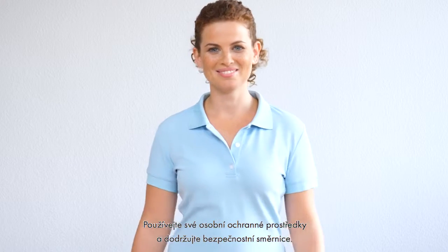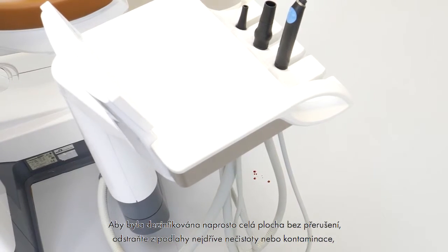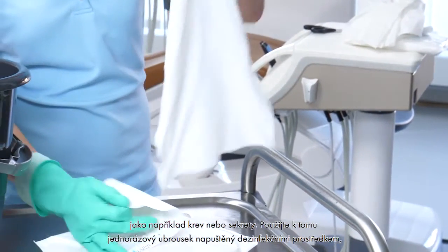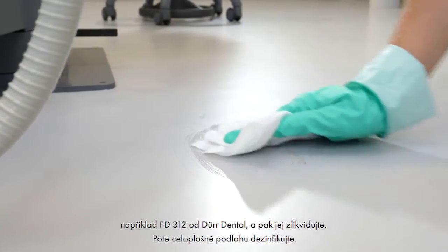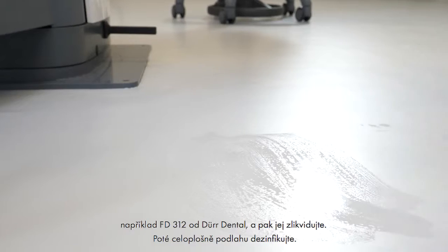Please wear personal protective equipment and observe the occupational safety directives. To disinfect the entire surface completely, first remove any dirt or contamination, e.g. blood or secretion, from the floor. Use a disposable wipe saturated with disinfectant, e.g. FD312 from Durr Dental for this purpose, and dispose of the wipe. Then disinfect the surface completely.